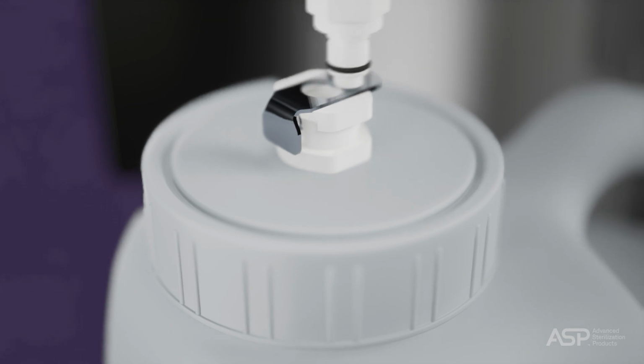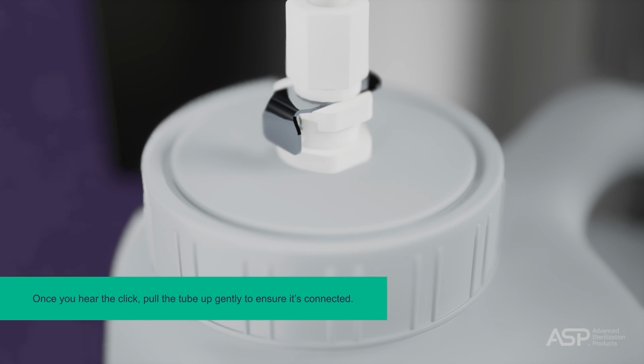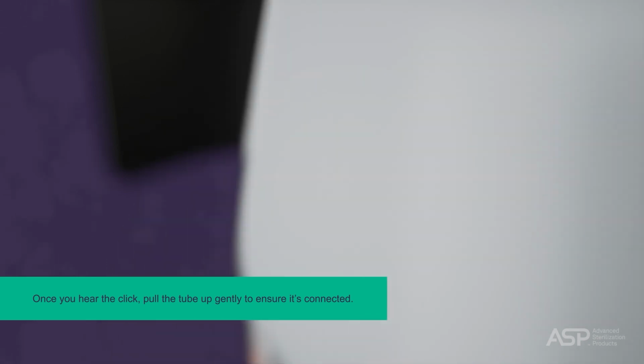Then reconnect the tube to the detergent bottle cap. Press the connector down until you feel it stop. You'll hear a click. Once you hear the click, pull the tube up gently to ensure it's connected.